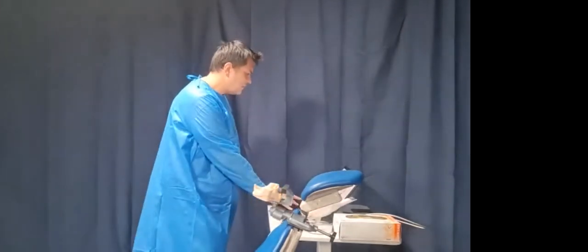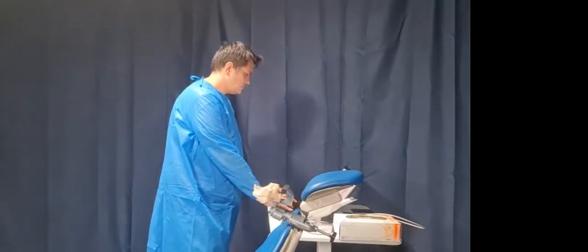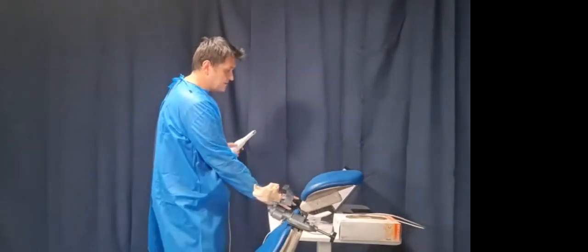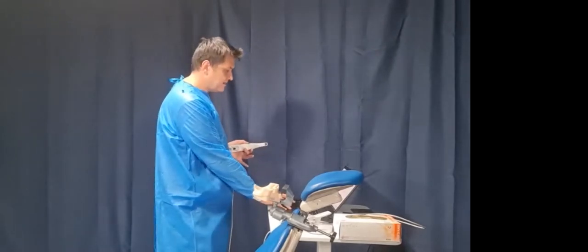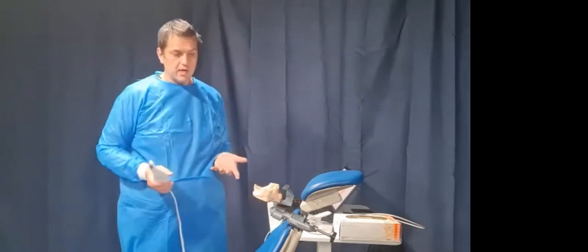Let's just quickly get this patient's file up. And while that's thinking, now we have the case up and running. Now what we're going to do is we are just going to have a quick look at the scan path before we get into the occlusal record taking part of it, which is what this is all about. So we have our lower in position, and I'm just going to show you what I did with this lower to get a really good scan of it.